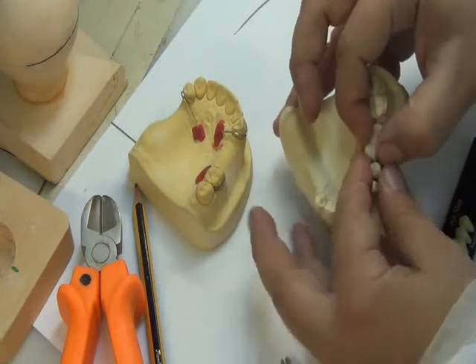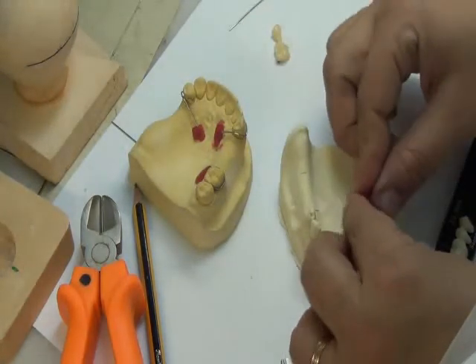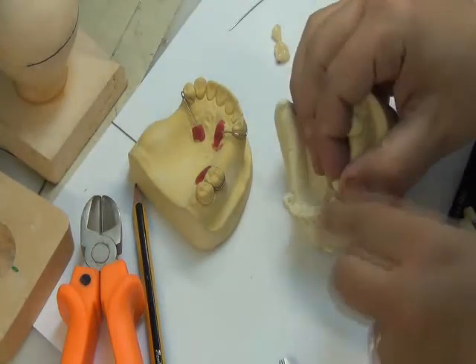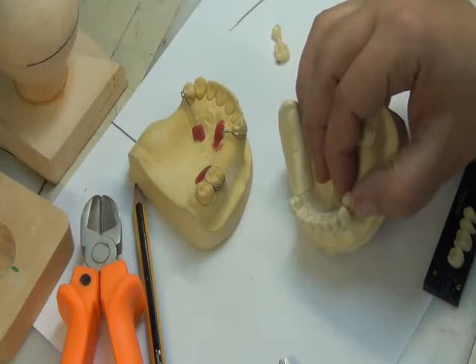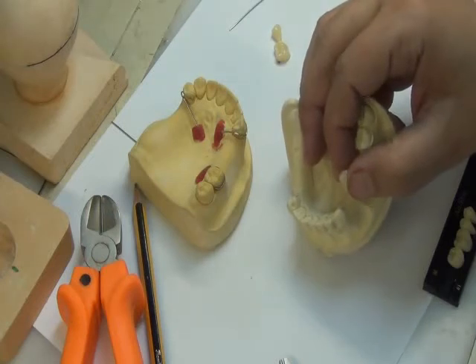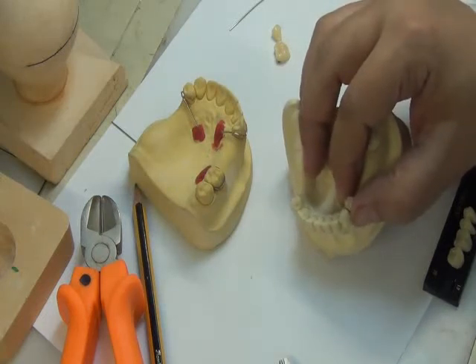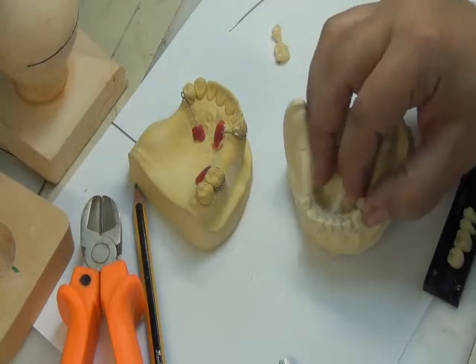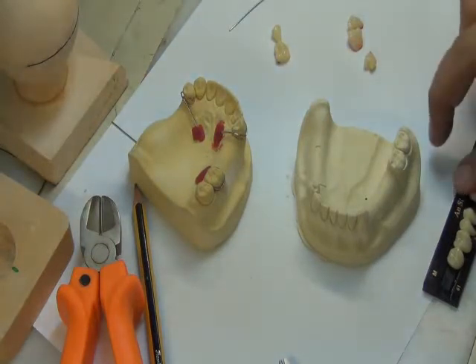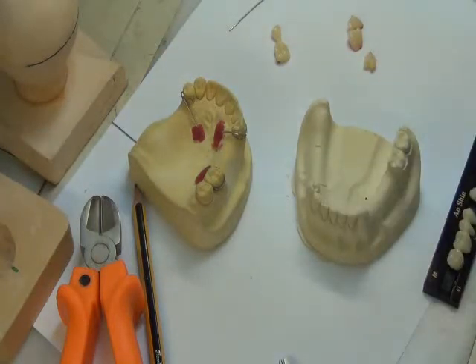But then when I want to fit the teeth, I fit the artificial tooth touching the natural tooth. The tooth on the cast represents the natural one, and this acrylic tooth is representing the artificial tooth. So I choose that the contact between the RPD and the natural tooth is tooth-to-tooth contact, no acrylic in between. And the extra spaces that I might have in between the teeth, I leave them to be covered by wax. So I leave the spaces for the inside, and I put tooth-to-tooth contact on the other side.